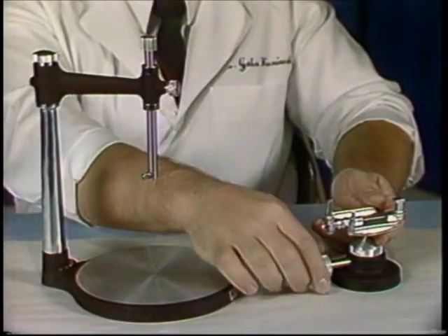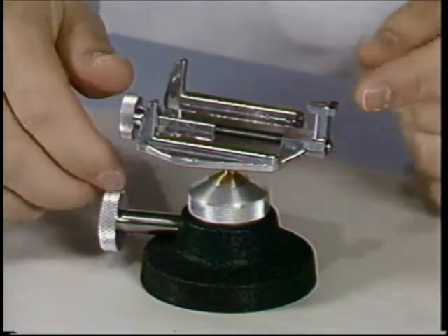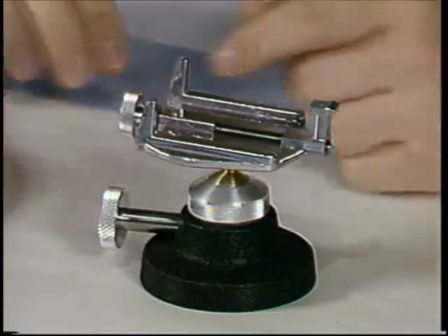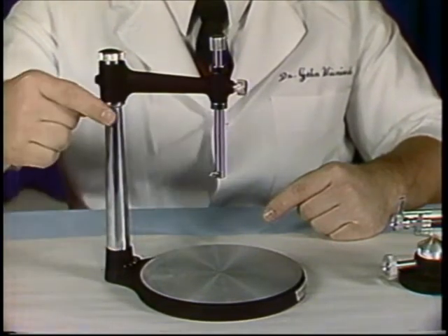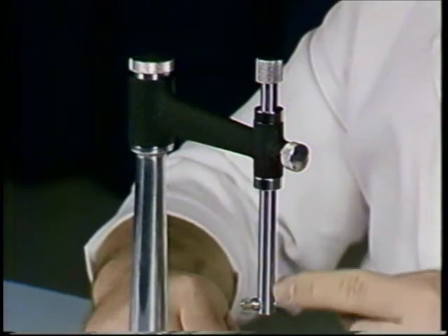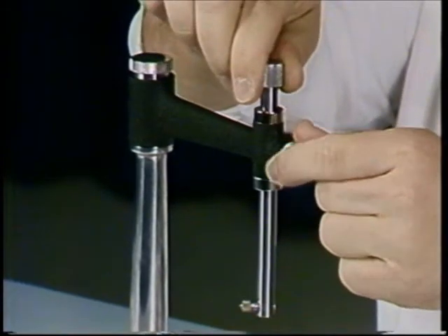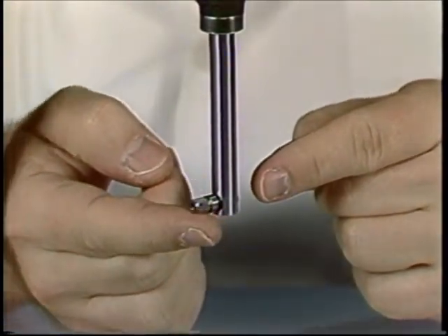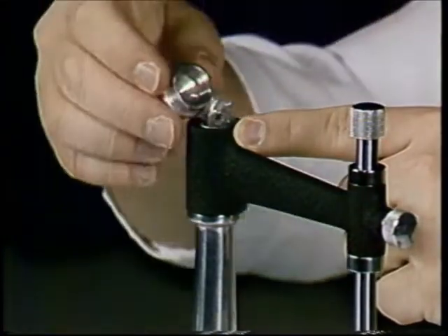There are several components involved in surveying. The surveying table, to which the cast is attached, has a locking knob which allows the table to swivel. The cast is secured to the table with a locking pin. The surveyor base, vertical arm, horizontal arm, and a movable vertical spindle. The spindle moves up and down and may be secured with a set screw. A small collet is used to attach the surveying tools to the vertical spindle. When the surveying tools are not in use, they may be stored in the metal column.